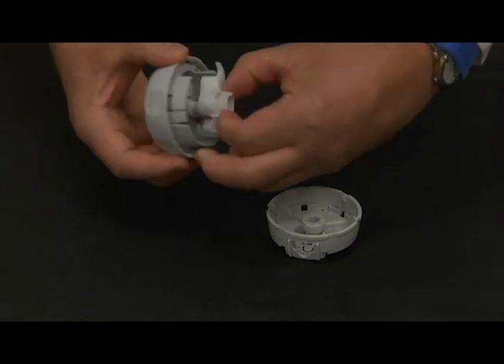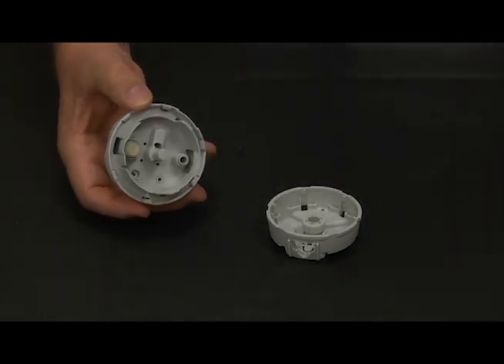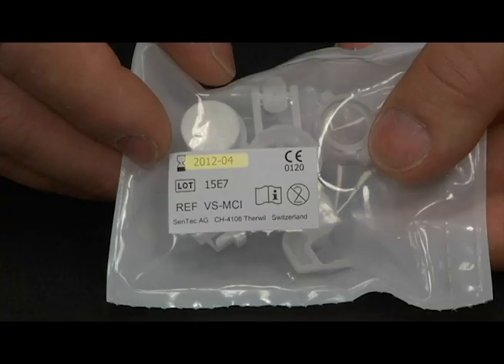Take the insert out of the membrane changer's base by gripping it in the center and dispose of it. Take a new bagged insert and verify its expiration date.